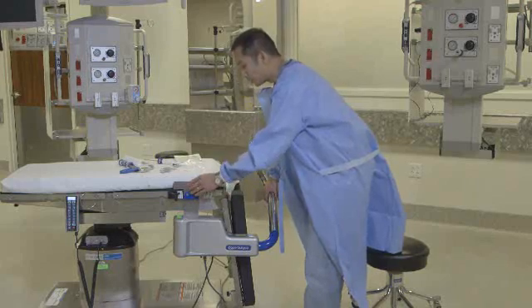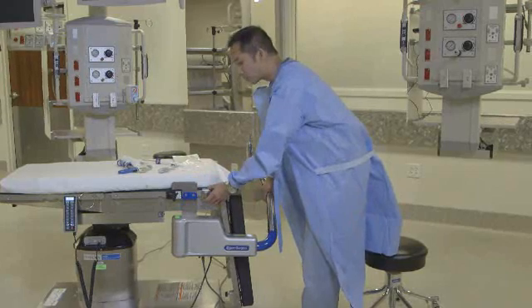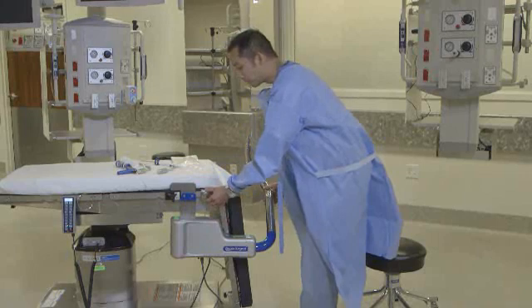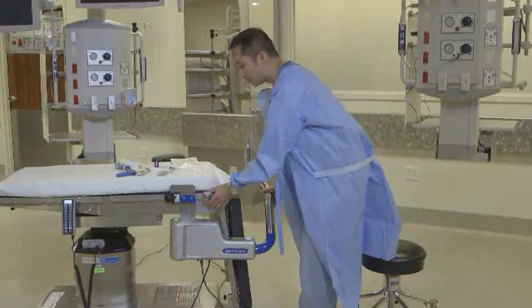One thing I want to mention before I do this: normally you will have a stirrup right here in front of you, and you'll have to navigate around that stirrup when placing the Ally UPS on the table rail. But for the sake of demonstration, we don't have the stirrup here — we just have the bracket to show you where you mount.